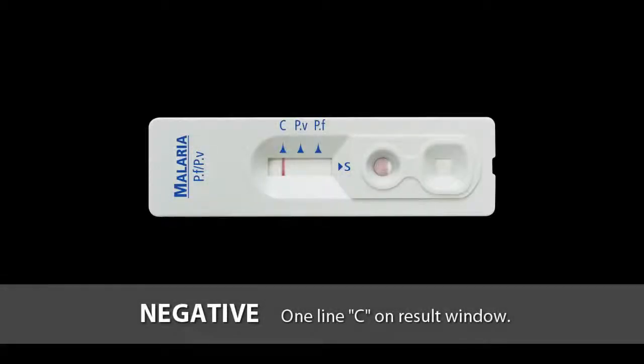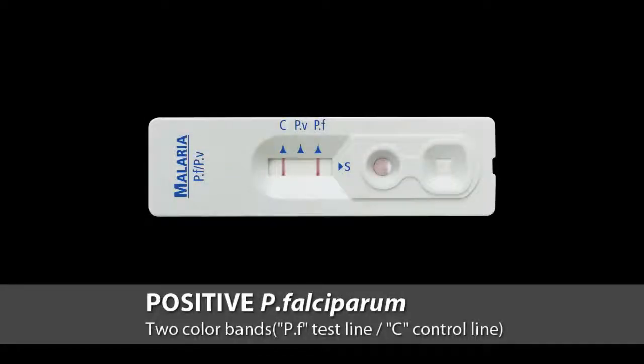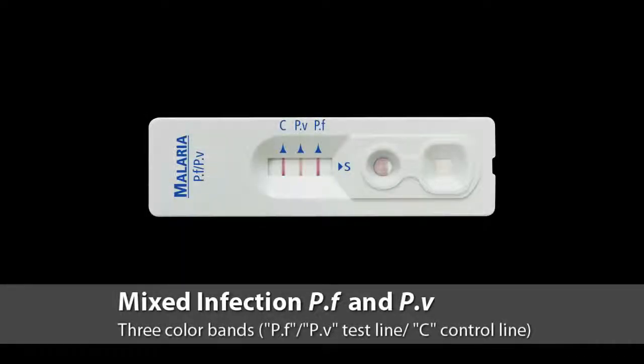Only one line, C, on the result window means negative. Two color bands on the PF and C lines mean Plasmodium falciparum positive. Two color bands on the PV and C lines mean Plasmodium vivax positive. Also, you can see 3 color bands on the PF, PV and C lines, which means mixed infection.